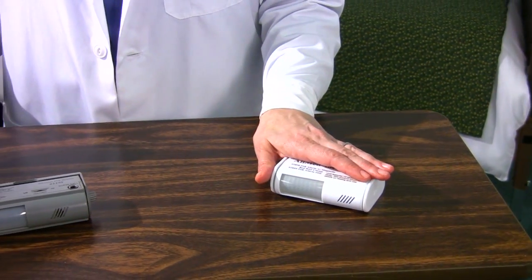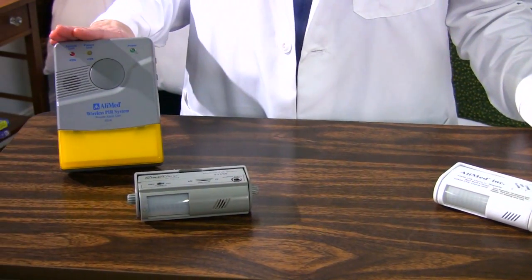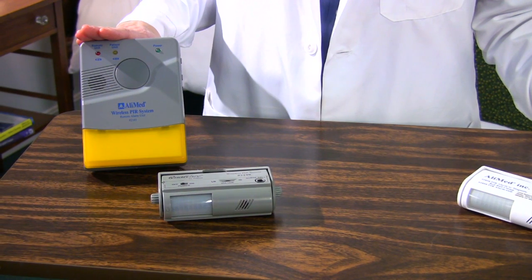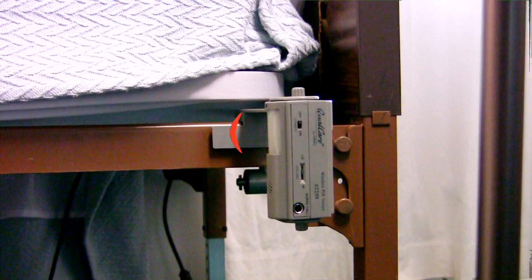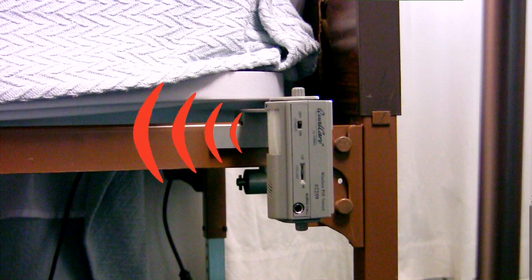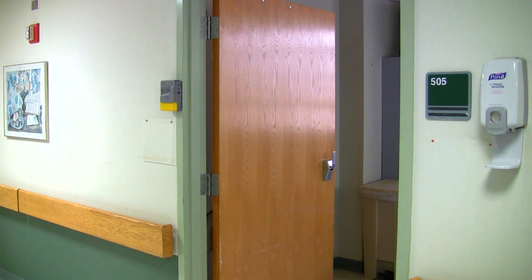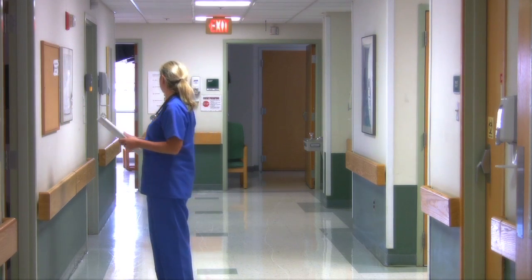System 3 is a variation of our basic PIR system but upgrades it from a local bedside alarm to an alarm that can transmit signals to the included remote receiver unit. Its most unique feature is its ability to transmit signals from multiple PIR alarm units to a remote receiver up to 100 feet away. This alerts staff in the hall or around the corner with an alarm tone and flashing light.